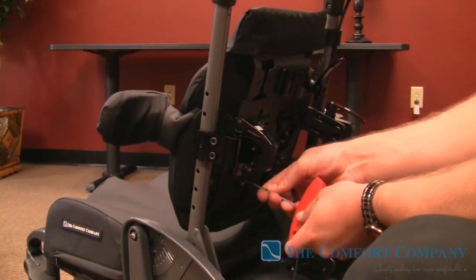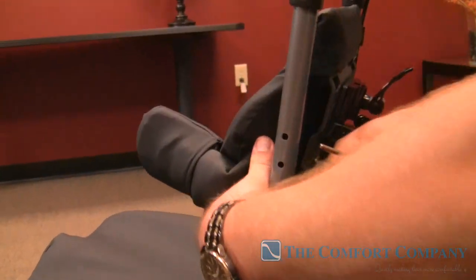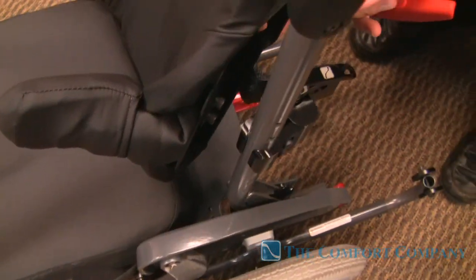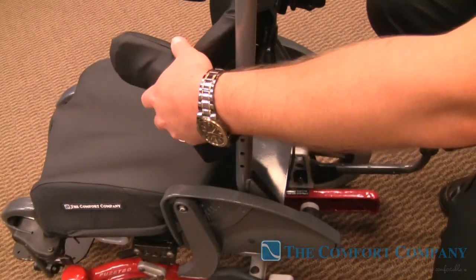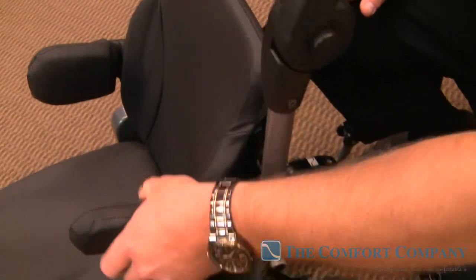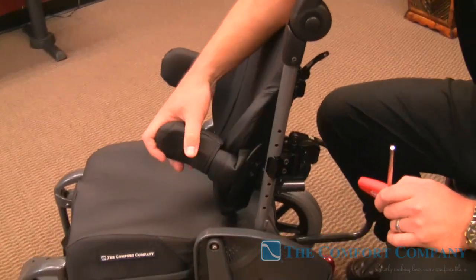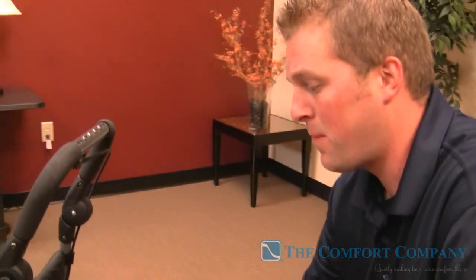For lateral adjustment, all from the back: you loosen this ring on the contoured wing, and you can get more offset in or move them out — with this alone you get an inch and a half to two inches of offset for your laterals. Because it's on the tracks, you can also angle this pad. If someone has scoliosis or extra tissue, you can angle the pad to create greater contact. The pads all have foam on the top edge — no hard edges — so if someone is leaning or you're correcting scoliosis using three-point method, there are no shear issues.